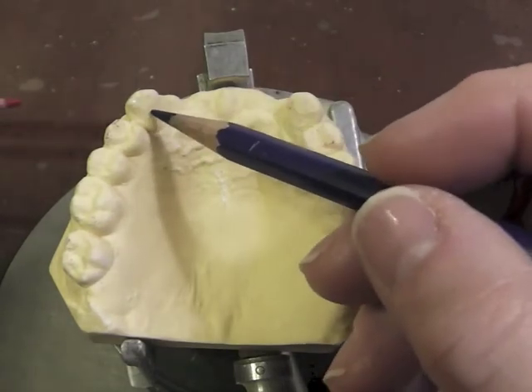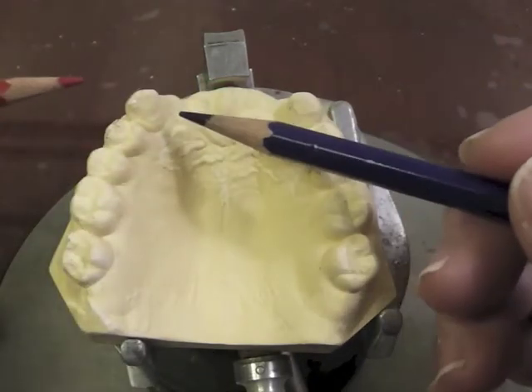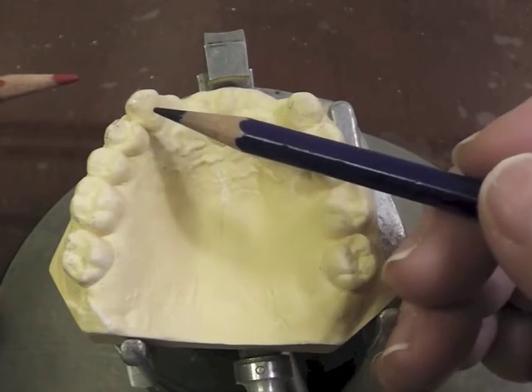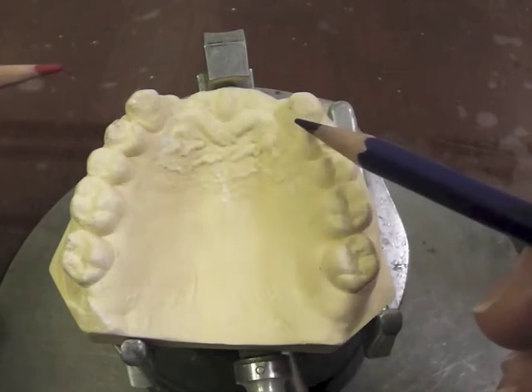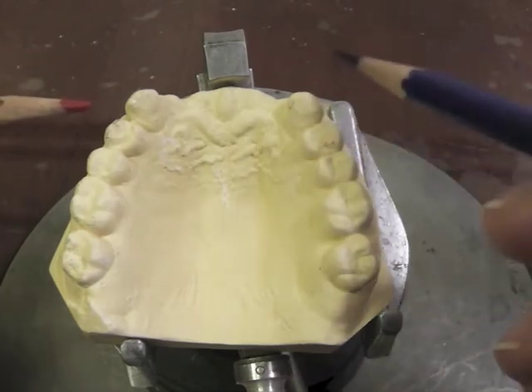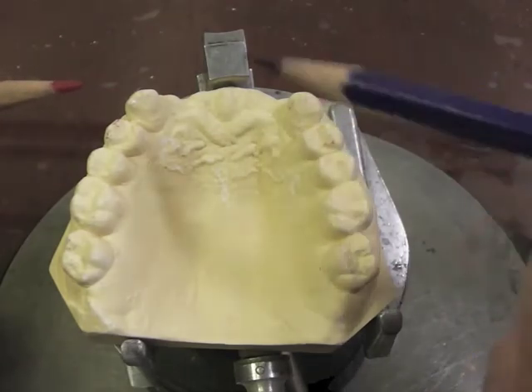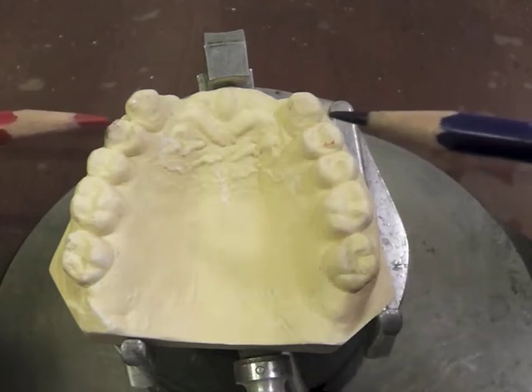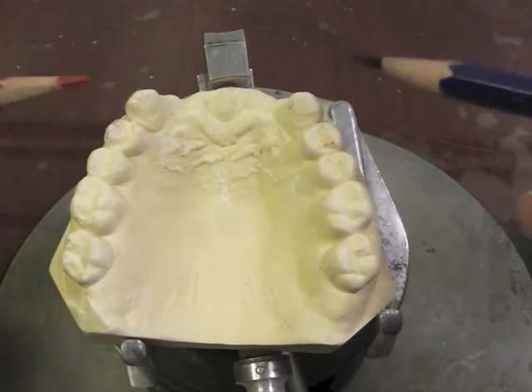We place cingulum rests on maxillary canines because there is usually a nice cingulum with adequate enamel where we can make an adjustment and create a positive seat without perforating into the dentin. We do not usually place cingulum rests on mandibular canines because they are really flat and don't have a prominent cingulum. If we tried to place a rest on them, we would likely perforate into the dentin and the patient would be very uncomfortable.